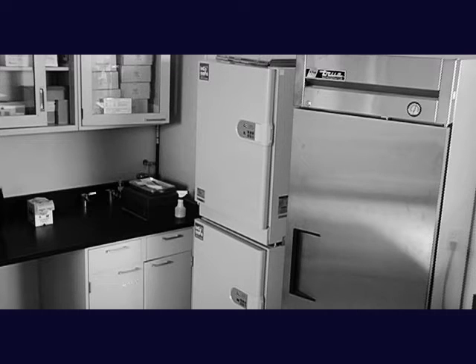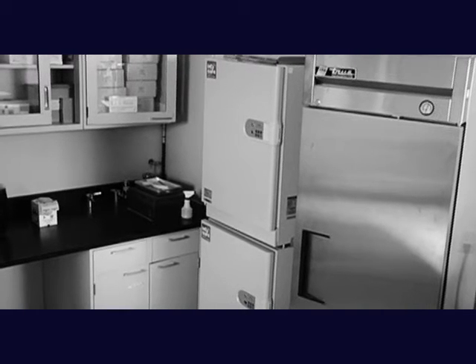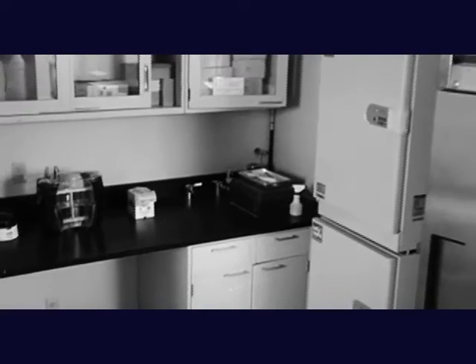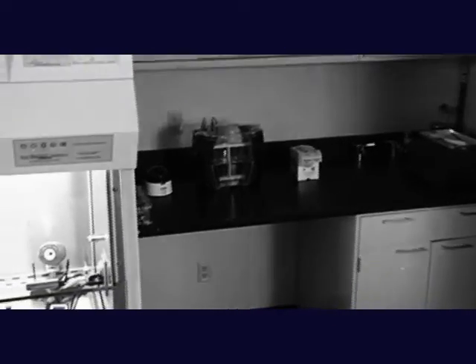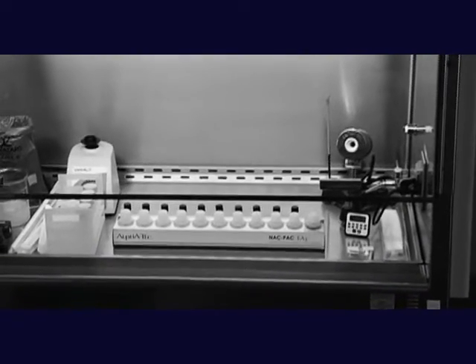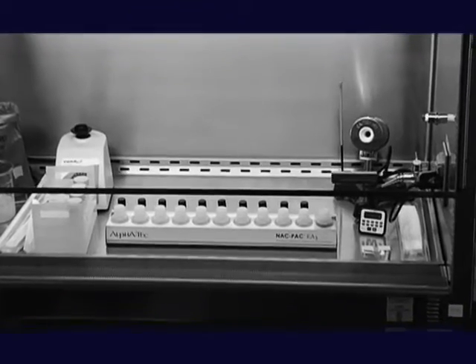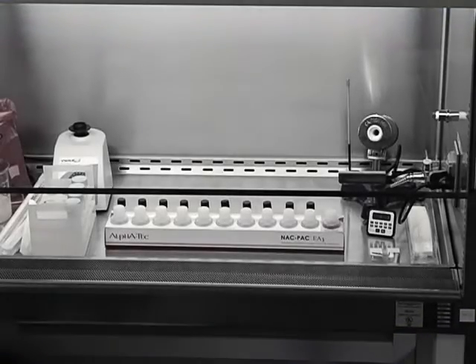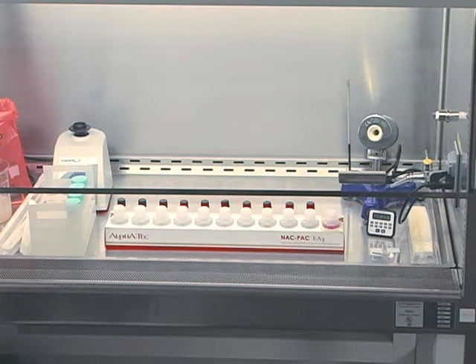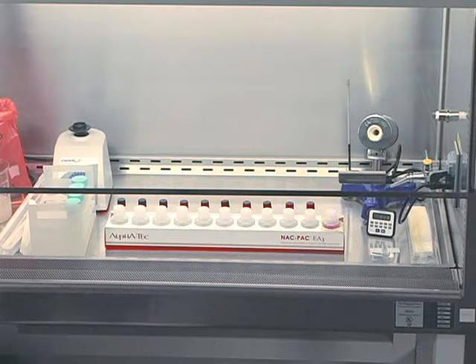AlphaTech Systems recognized these problems with traditional specimen preparation methodologies and developed a complete set of reagents that overcome them. Using the procedure shown in this presentation with the reagents provided by the NACPAC EA3, your laboratory can maximize mycobacteria recovery, remove the risk of cross-contamination, and generate reproducible sample characteristics time after time. This will result in the most sensitive pre-analytical specimen preparation for mycobacteria available.